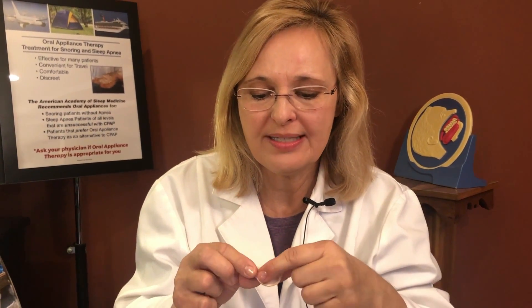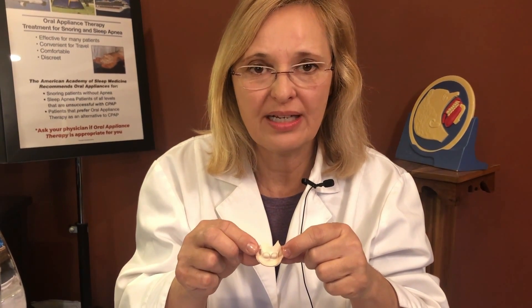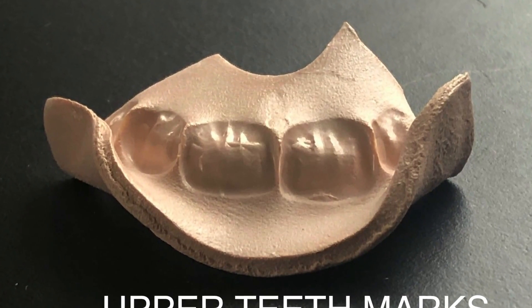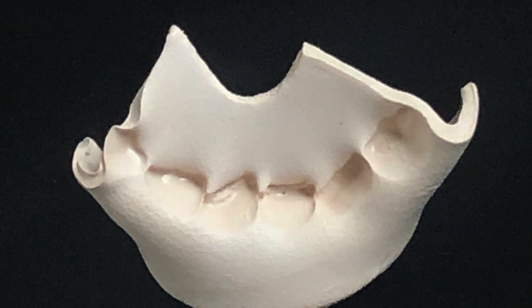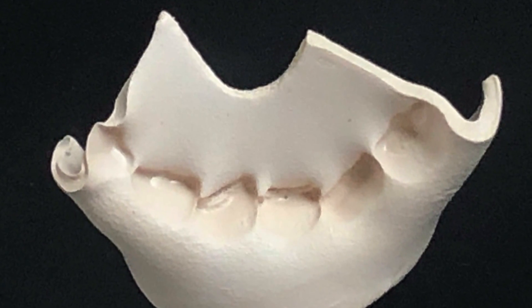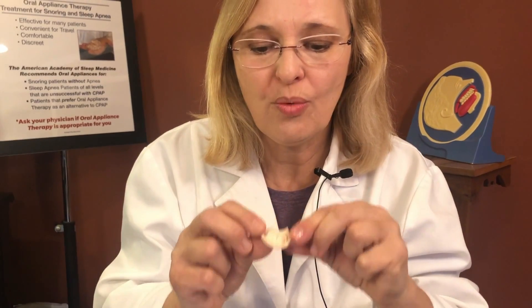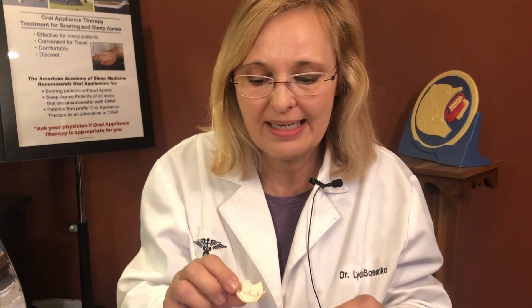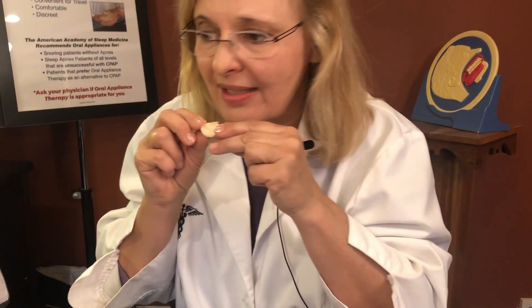You're going to see the imprints of your teeth, and you want to make sure you can see the edges when it's inserted onto your teeth. The top imprints are deeper, and the bottom ones are smaller — that's where the bottom teeth go. When I bit firmly on the floss with the device in, it was very similar to biting without it, meaning the back teeth are coming down together as they normally do — and that's really what you want to maintain. To use it, simply insert the top teeth into the top grooves and let the bottom teeth settle back into place.